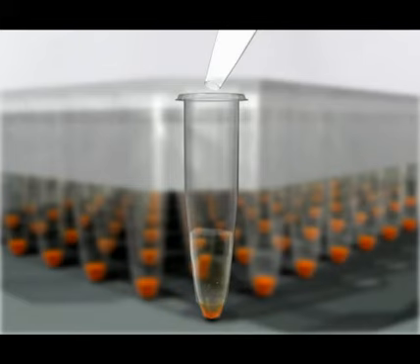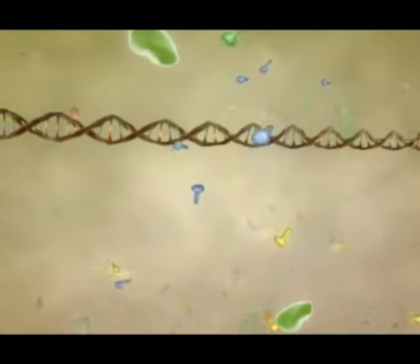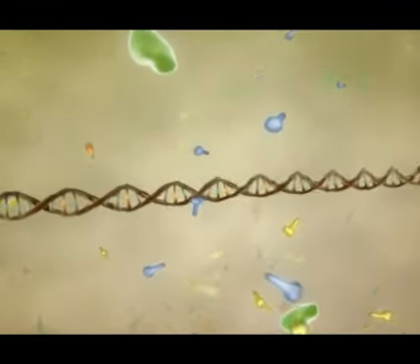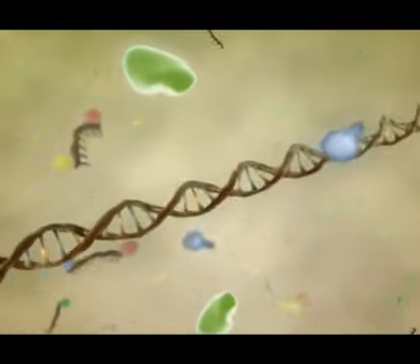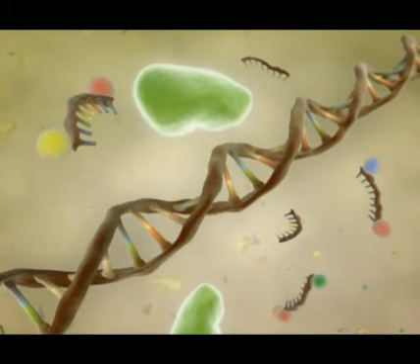Each well of the reaction plate is dedicated to a distinct patient, providing polymerase chain reaction chemistry and synthetic DNA probes that are tailored to detect the precise genetic signature of each infectious disease being assessed. There is no need for reagent preparation.